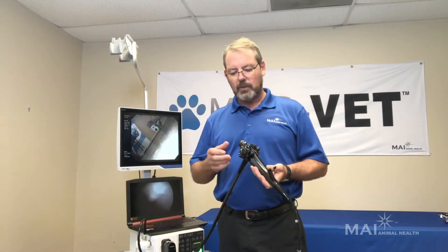There's a freeze frame feature that I'll show you later on the computer. There's no more eyepiece with our scopes because everything is digital — there's a camera in the tip of the scope, which allows a much higher level of resolution than standard fiber optics. The old fiber optic instruments used to be about 30,000 pixels maximum.